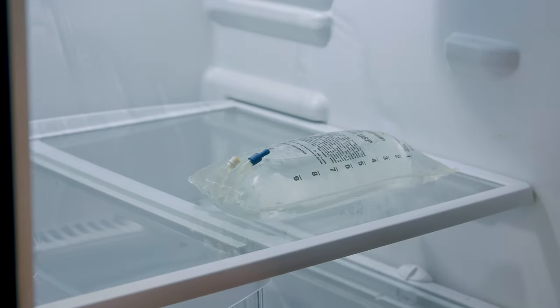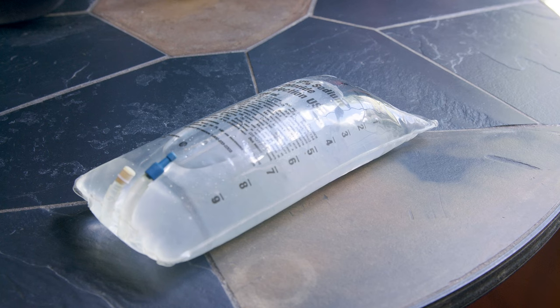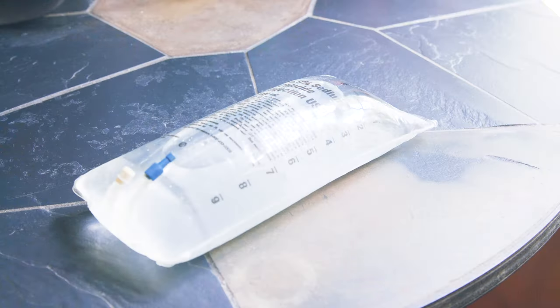If your medication is refrigerated, remove it from the refrigerator 2 to 6 hours before administering, as instructed on your medication prescription label. Place the bag of medication on a clean, dry surface to warm to room temperature. Prepare your work surface by cleaning the area thoroughly with soap and water or a disinfectant wipe and drying thoroughly.